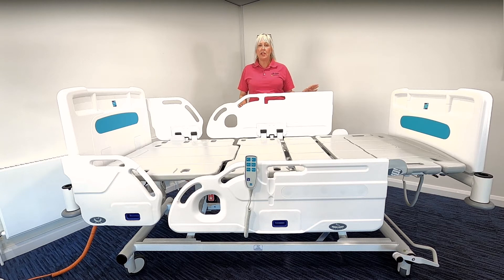There is no age limit applied to the bed use. However, if a patient weighs less than 40 kilograms, has a BMI of less than 17, or is less than 146 centimetres in length, then a risk assessment must be carried out to ensure that the bed is safe and suitable for that individual patient to use.